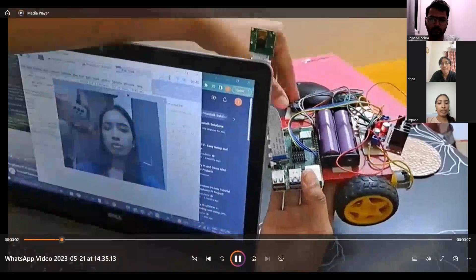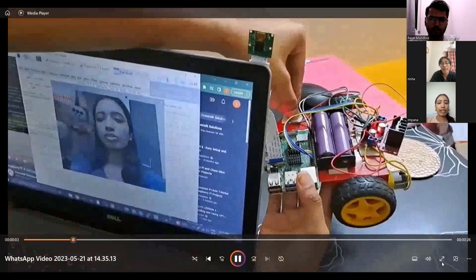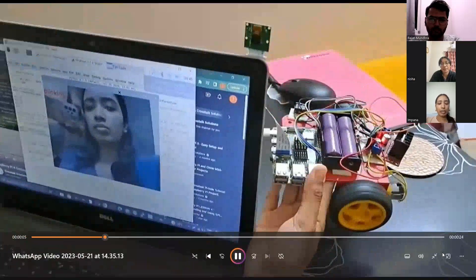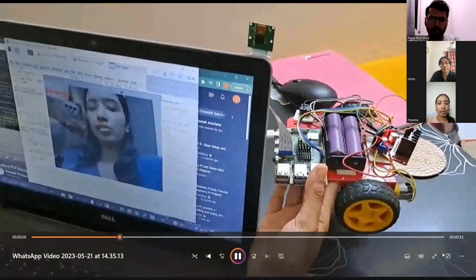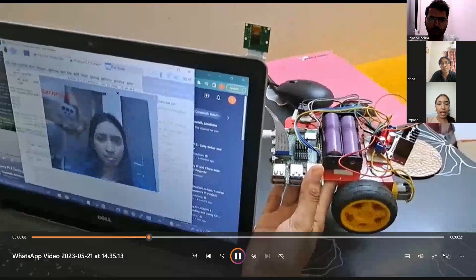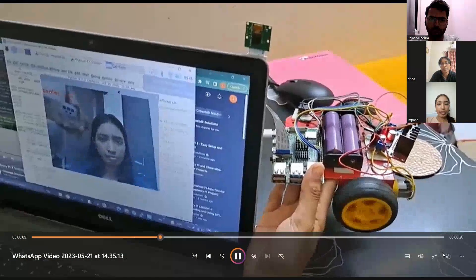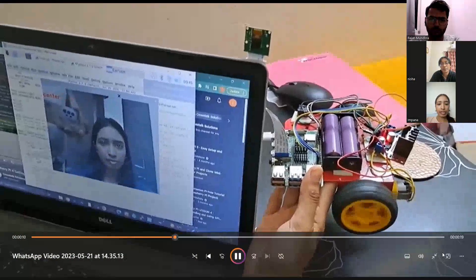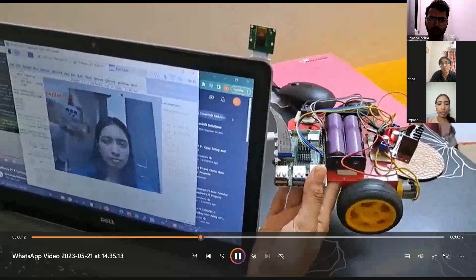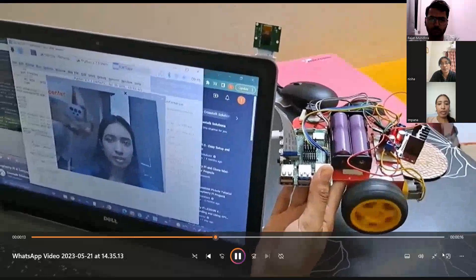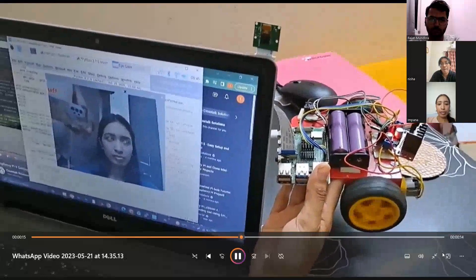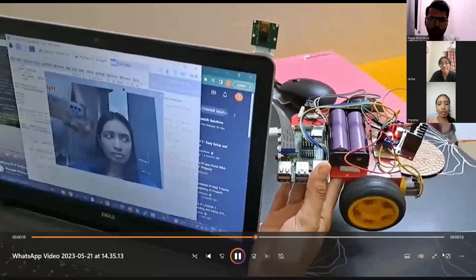As you can see, I have connected the camera on top of the laptop to capture my eye movements, and you can see the wheelchair movement according to my eye movement. I'm looking towards the center of the camera, it moves straight.